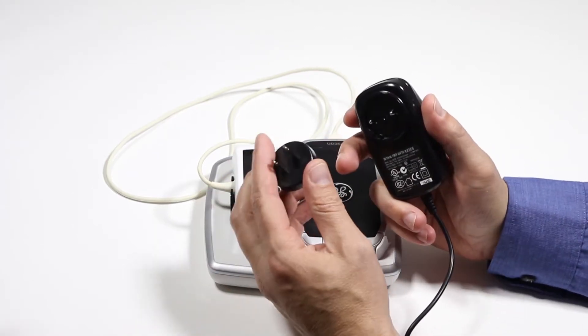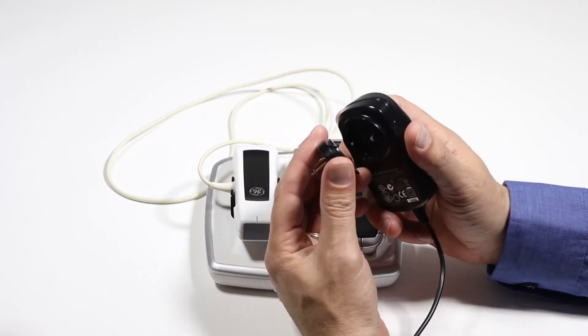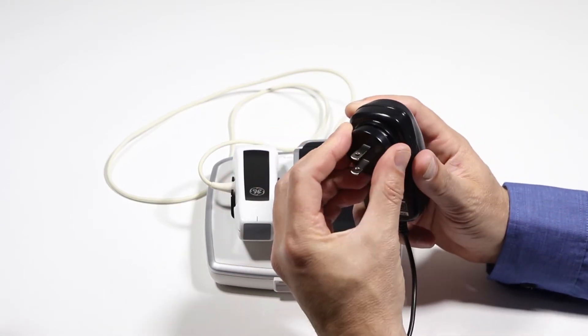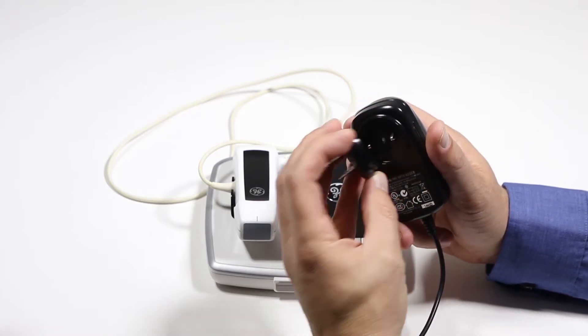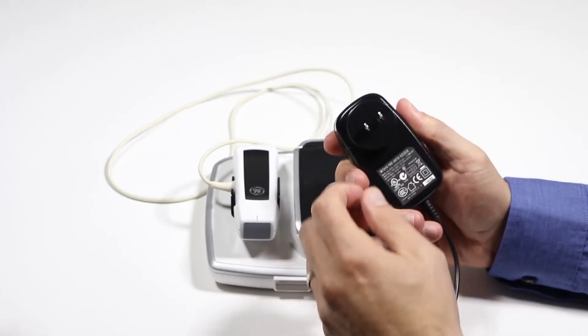You need to find what country you're going to be in, what the appropriate connection is. You look at the back, you can slide it in, get it aligned correctly, and then just twist and it's locked into place.